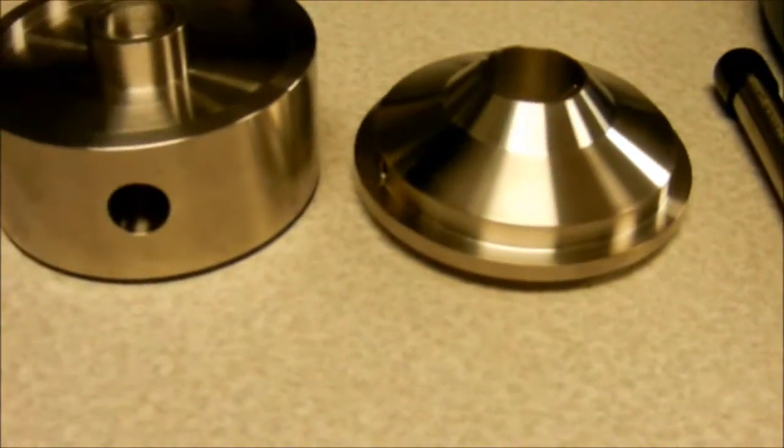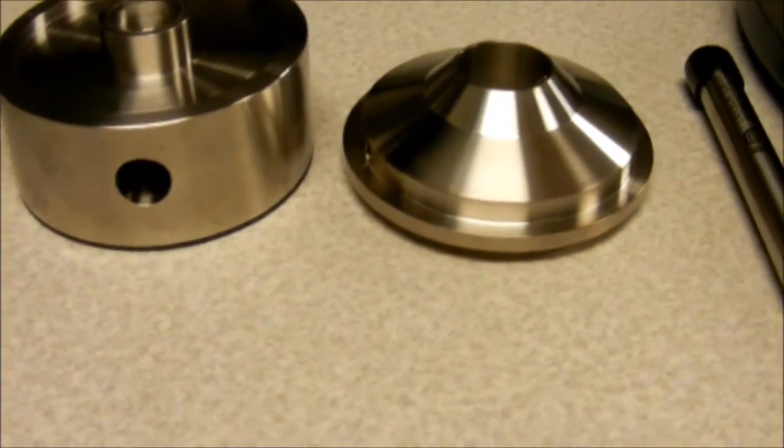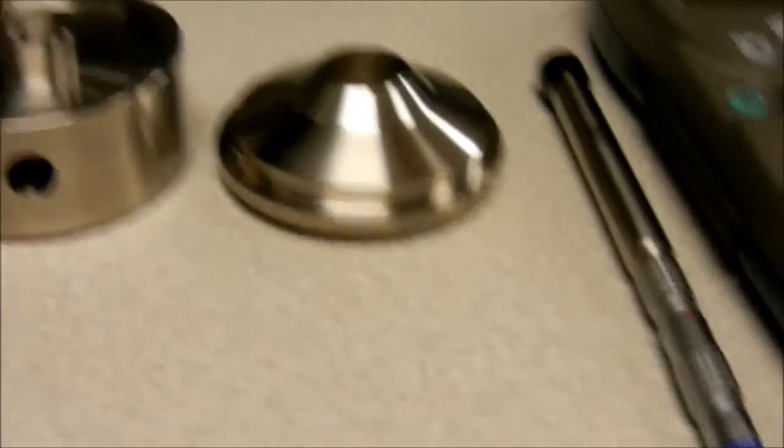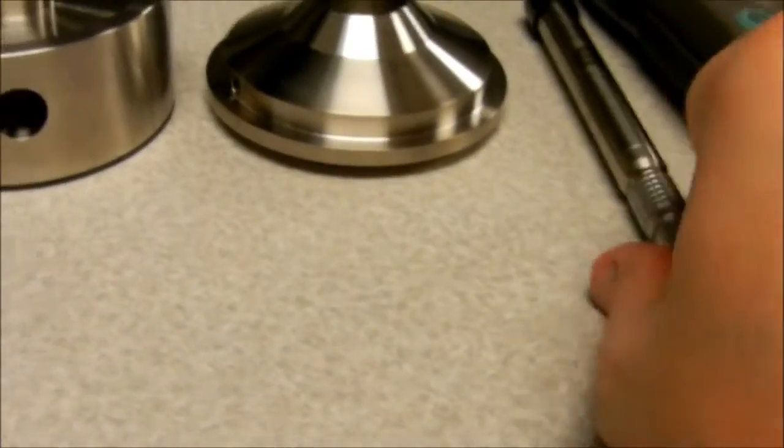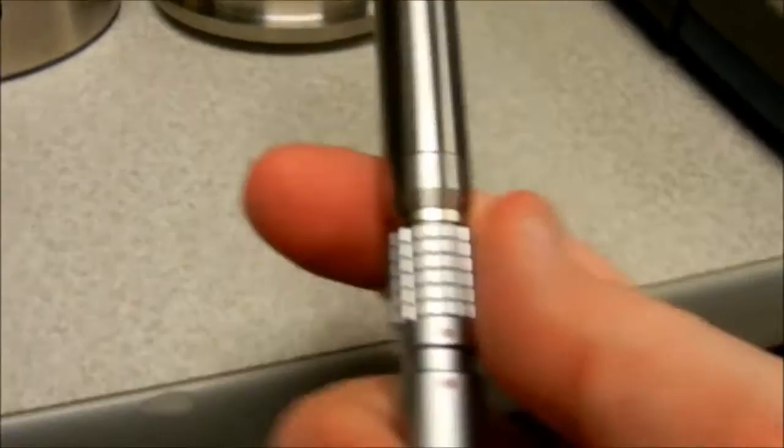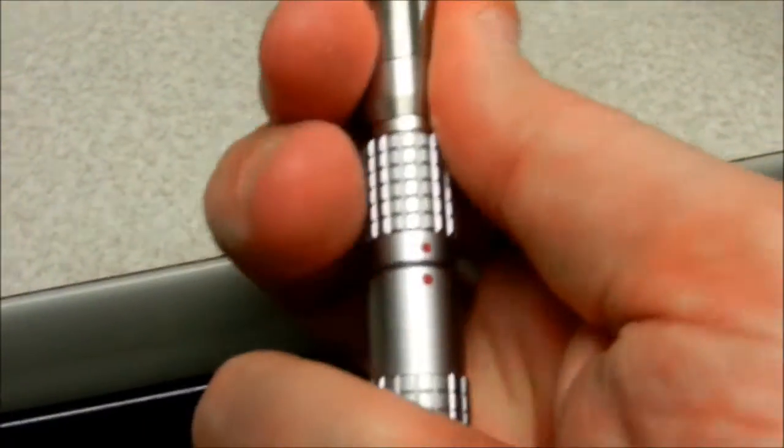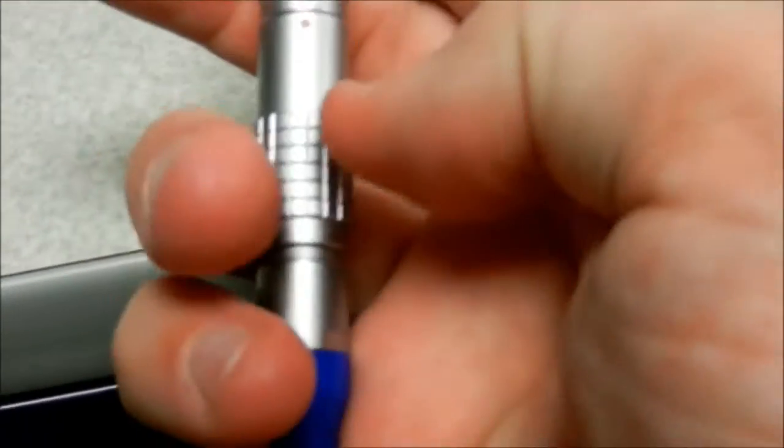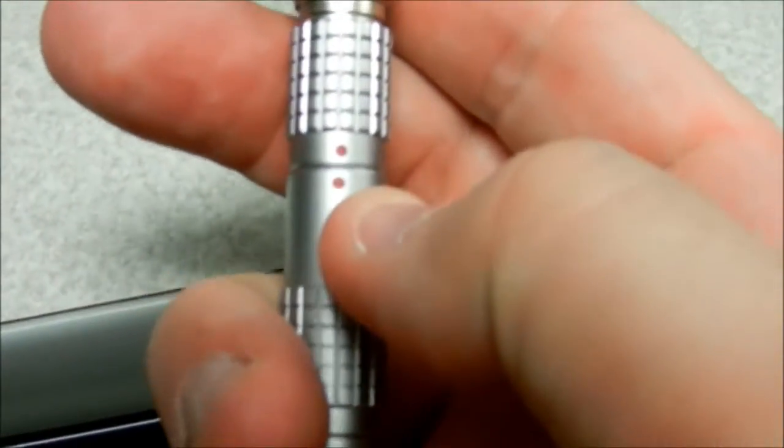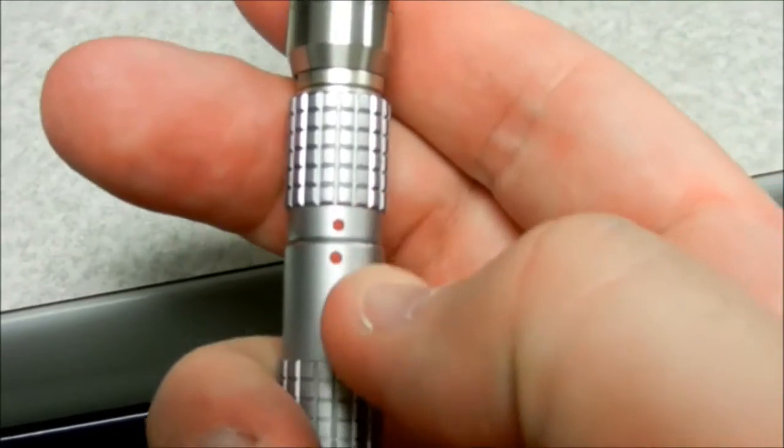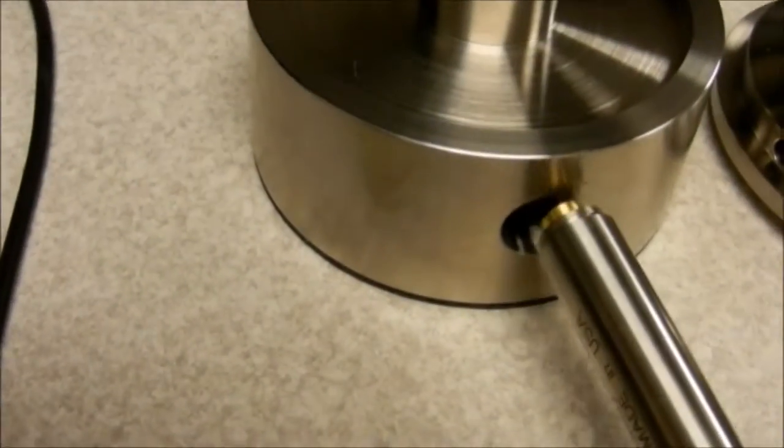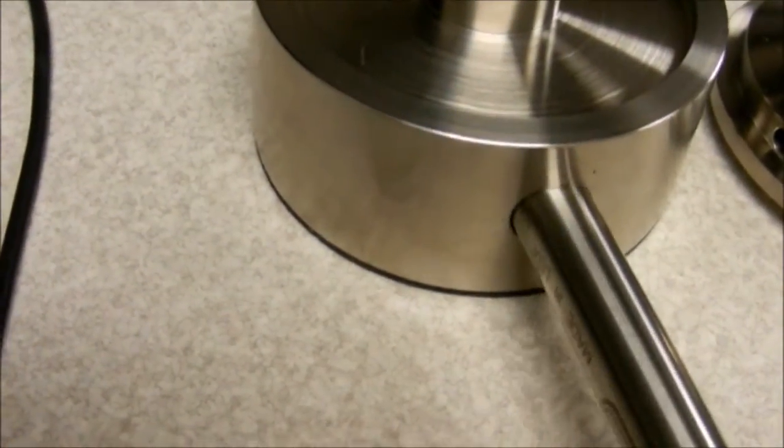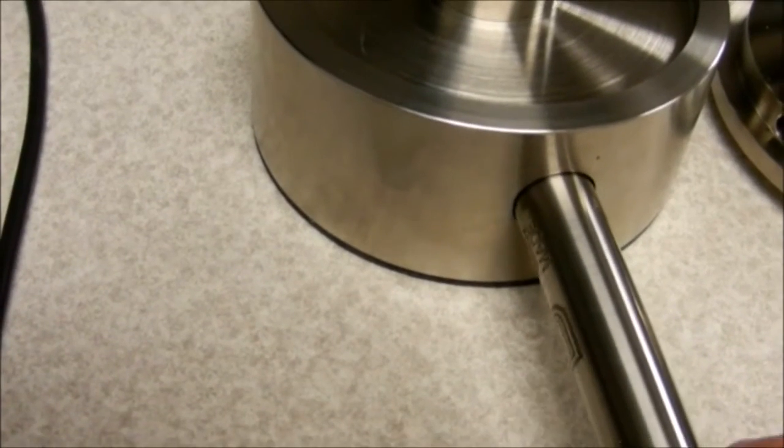Let's connect the preamplifier to the artificial ear now. We snap this together and again you have the red dots connected together. Remove the plastic piece, and this end we screw into here very gently.